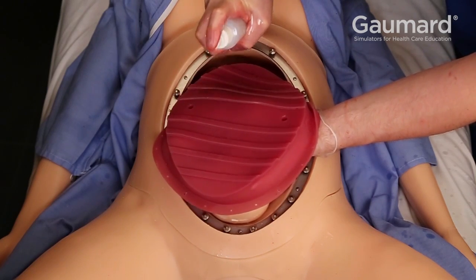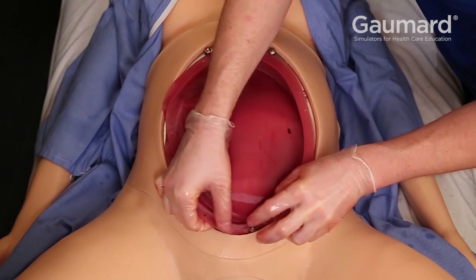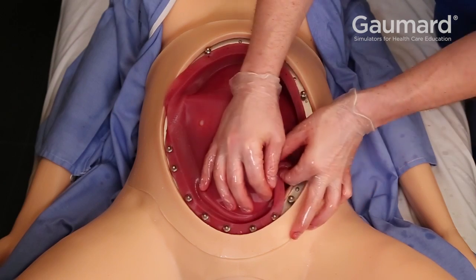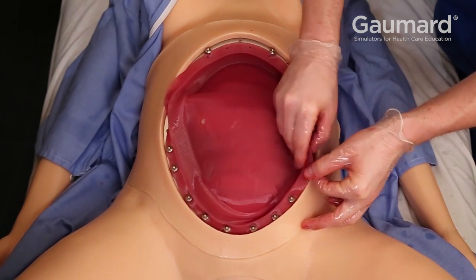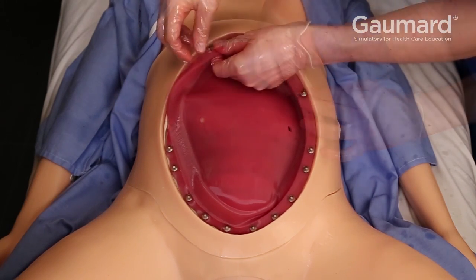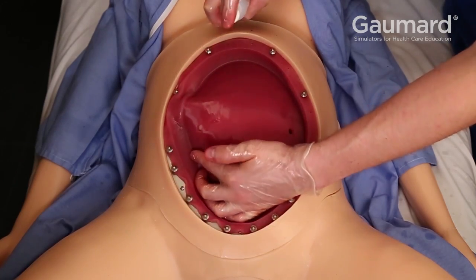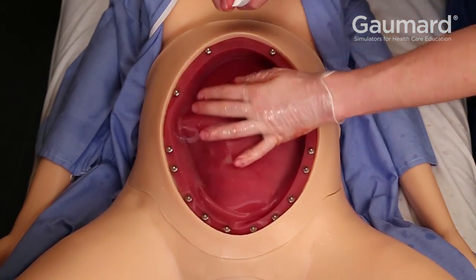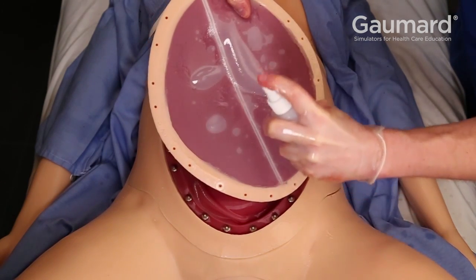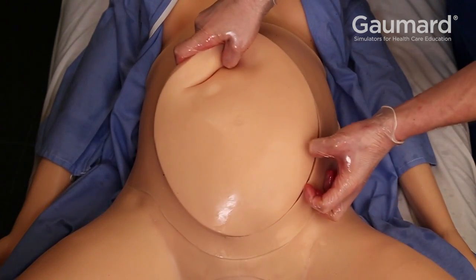Use the same mineral oil to also lubricate the underside of the uterine layer. Line up the holes in the uterine layer with the metal pins in the abdomen and gently push the holes around the pins. Use mineral oil to lubricate the top of the uterine layer. Lubricate the bottom of the c-section insert with mineral oil, then line up the c-section insert with the abdomen and push the holes over the metal pins.